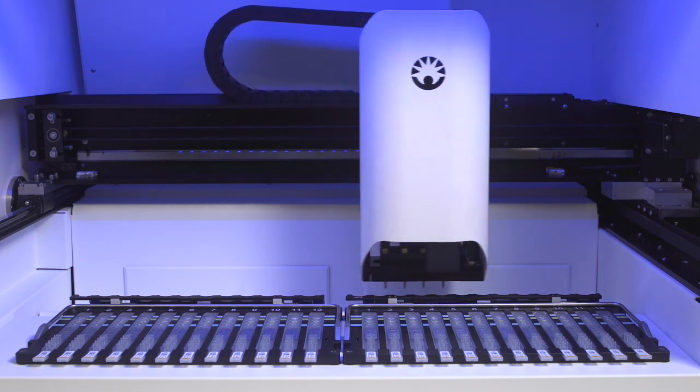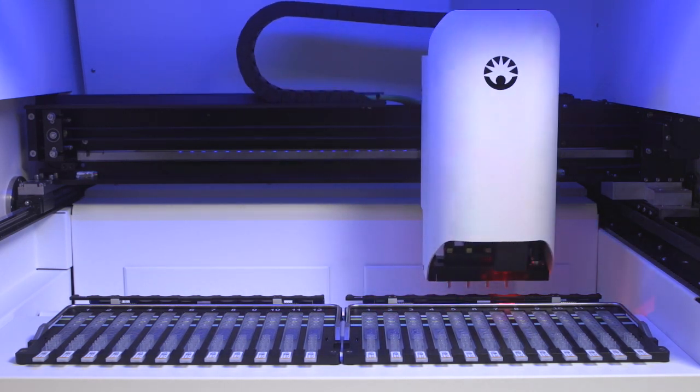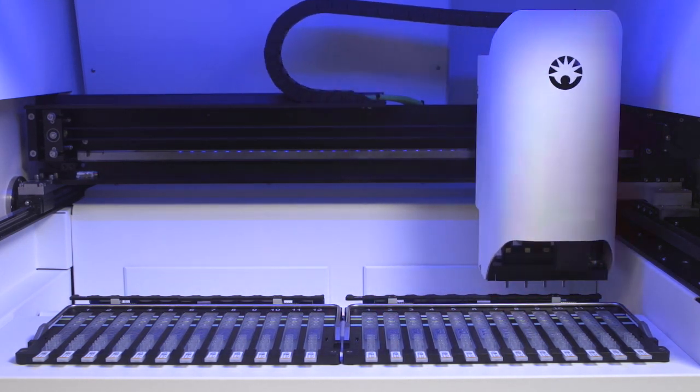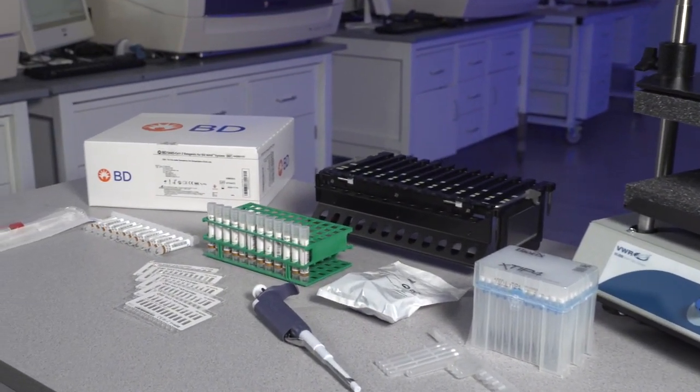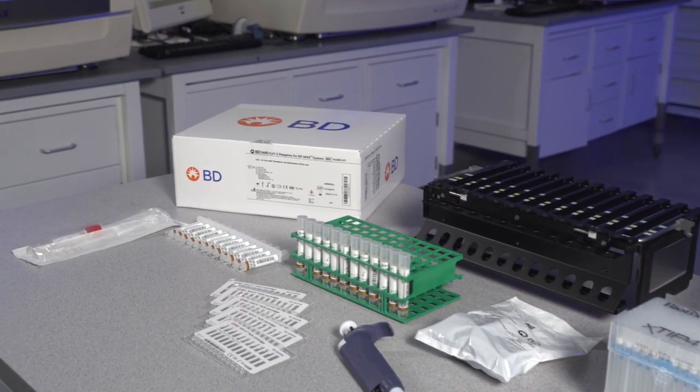We'll go over specimen preparation and how to create a run on the BD-MAX system. For additional instructions and information, always refer to the BD-MAX system user's manual and BD-MAX SARS-CoV-2 package insert. Let's get started.